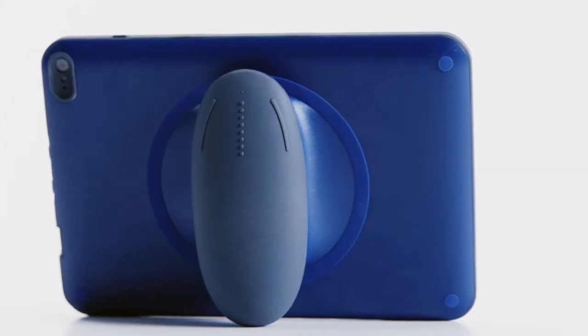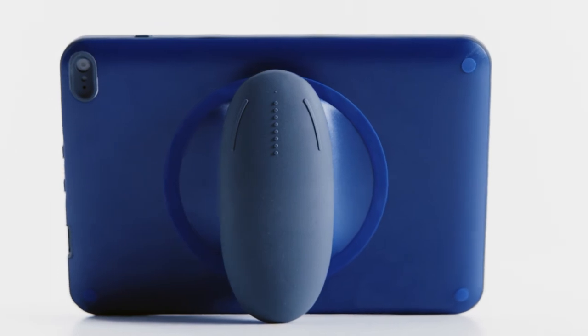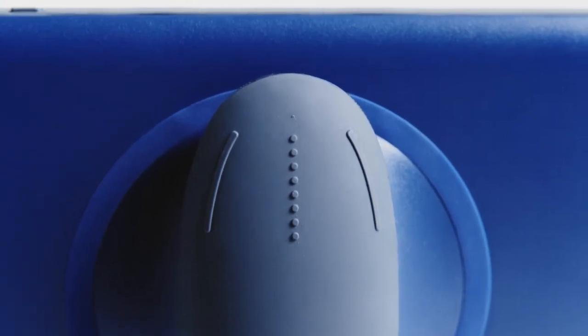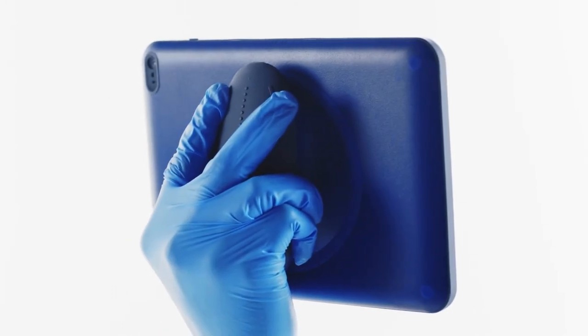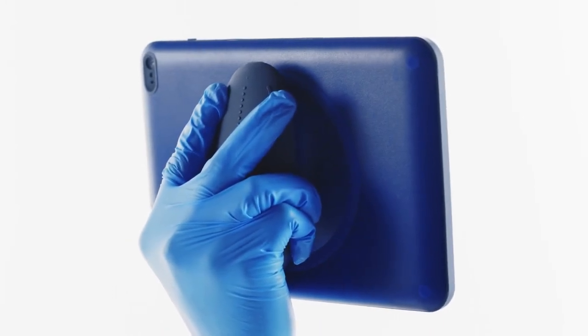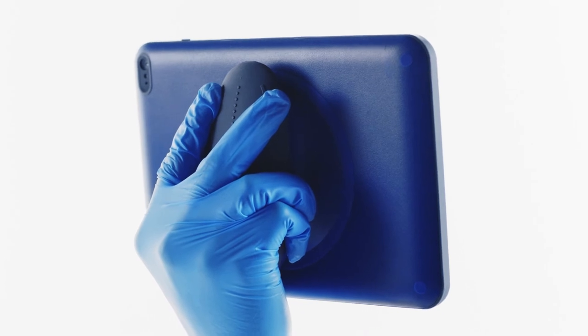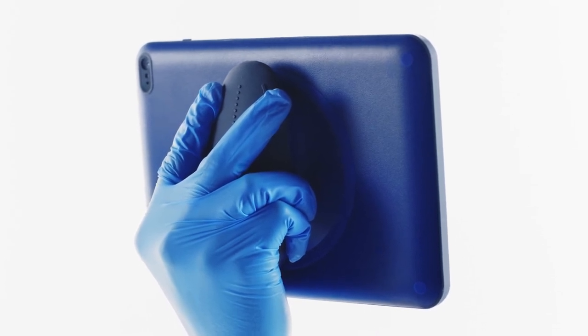Let's focus on the handle controls. The handle controls were specifically designed with function and accessibility in mind. We recommend holding the handle in this position to access buttons easily. This allows the weight of the bridge to rest in your palm. However, you may find other positions work better for you.